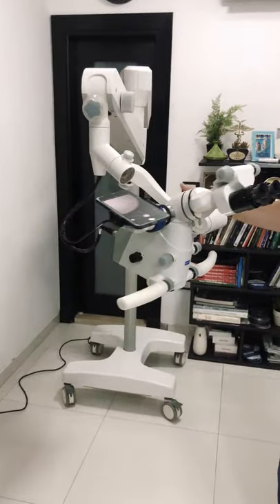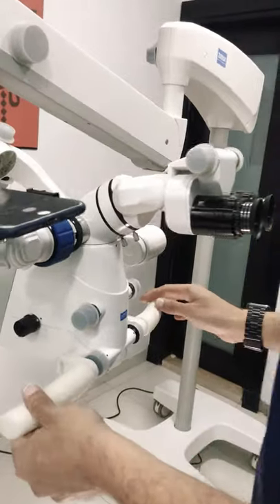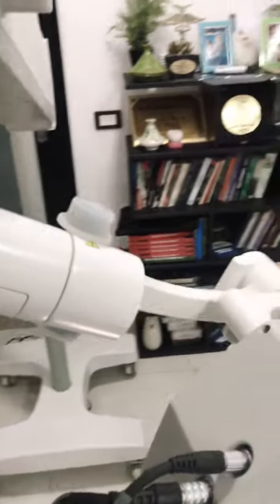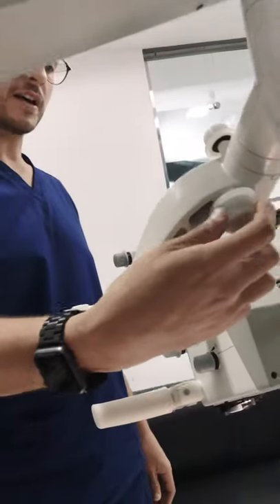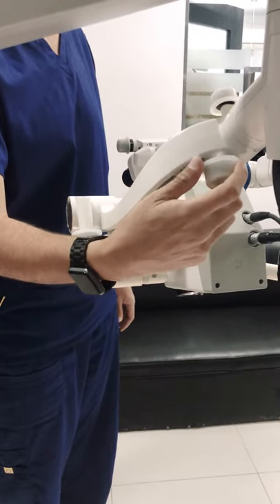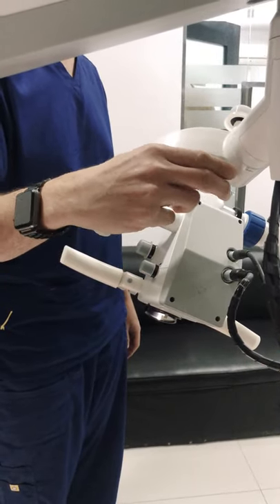Coming to the head itself and ergonomics, you notice a really huge improvement over other models. There is a really light and feather-like movement of the head, which is made possible by the very nice and smooth superbalancing connection system. The superbalancing connection provides control over the heaviness of the microscope itself and the direction of the splitting of the microscope. You can move the microscope to the right and the left and fix it according to the desired weight you want to stabilize it onto.